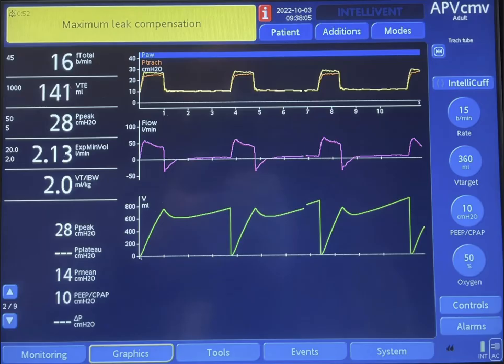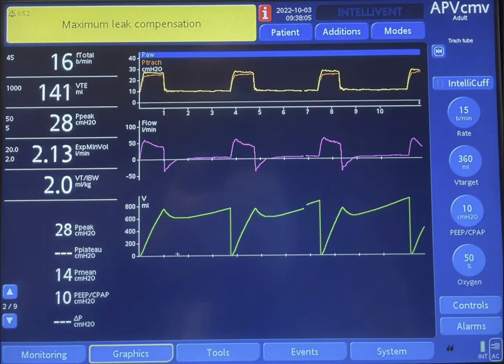If we look at the volume, this is the peak or tidal volume at the start of expiration. Volume starts to go down, reaching around 600 ml but then stays at the same level — it actually goes up slightly due to some positive flow. The difference between this volume and the baseline volume represents the air that has leaked. The machine is trying to compensate for that leak but has reached maximum compensation.